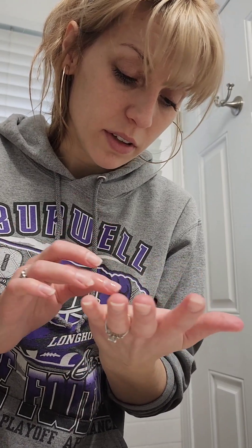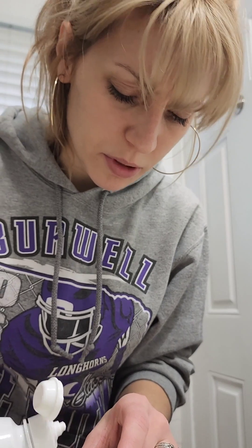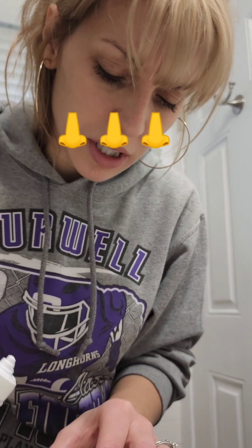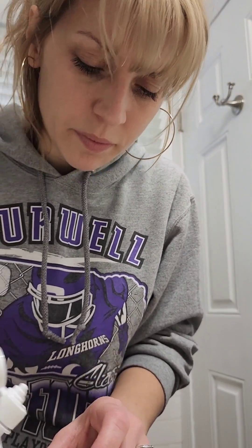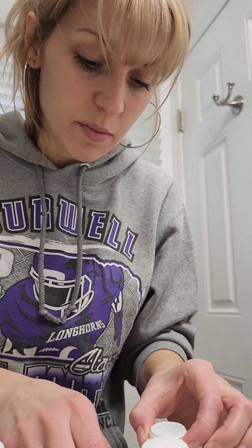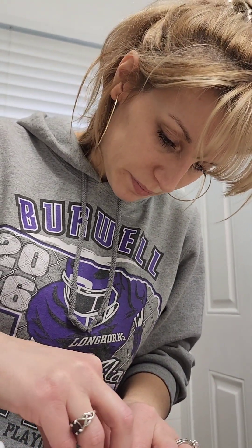All y'all that made this look super easy — good job. But I'm pretty sure they're not the right prescription or something, because they said these might not be exactly like your prescription. I don't know, I'm confused, because there was a lot of stuff we had to talk about. I can't have the same number on both sides. I don't know how much solution to put in here — she didn't really say.